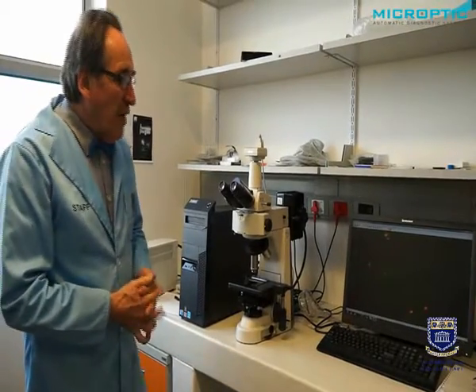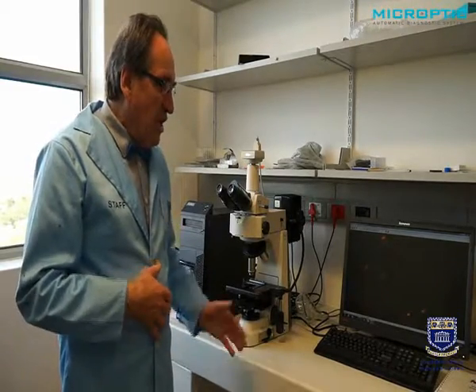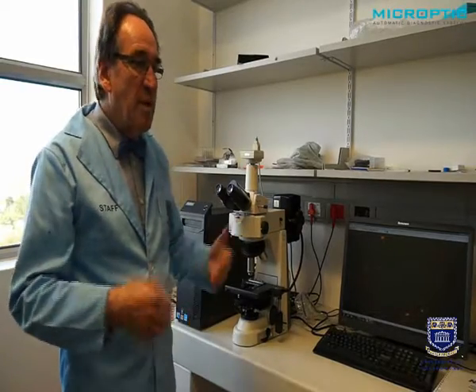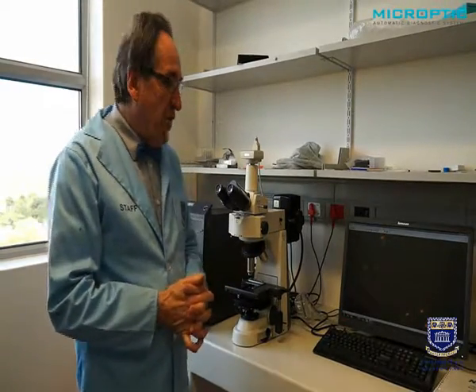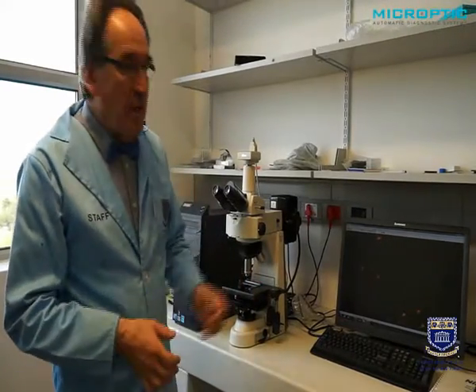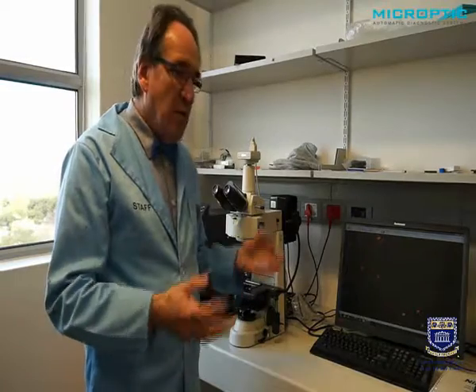Now one can do a lot of other fluorescence techniques with spermatozoa, which has nothing to do with vitality but shows other facets. For example, the acrosome reaction, and one can then have a very nice image of a fluorescent sperm, of fluorescent acrosomes, and one can capture that in the Sperm Class Analyzer's cell counter and analyze it there semi-quantitatively.